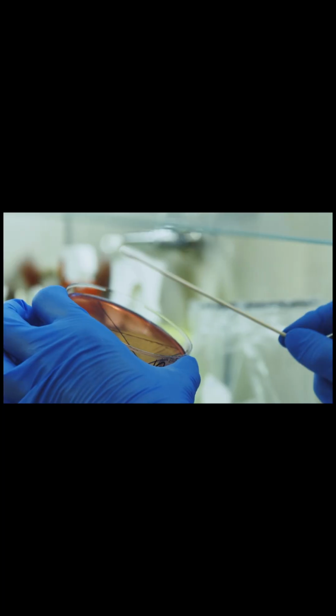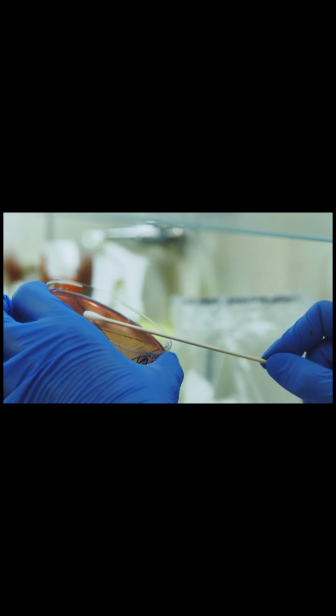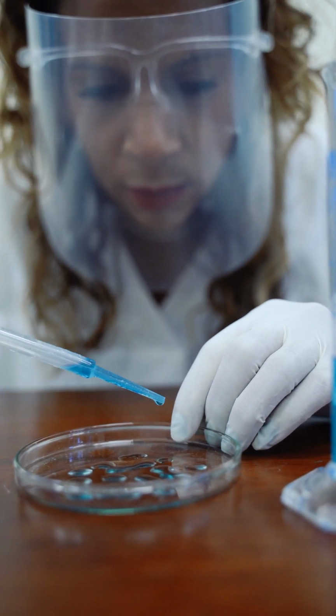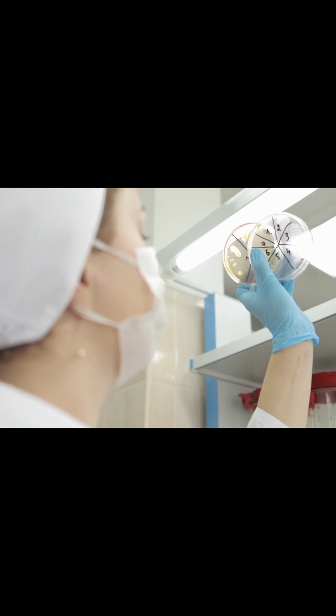So microbiology is all about identification of bacteria and sensitivity. So if the doctor is suspecting there's any infection, they'll send the sample. So we have urine samples, we get tissues, fluids, pus, swabs, bones, anything you can imagine. They're going to send the sample to us, and then we're going to do the culture. So for culture, we have different media plates that we use.